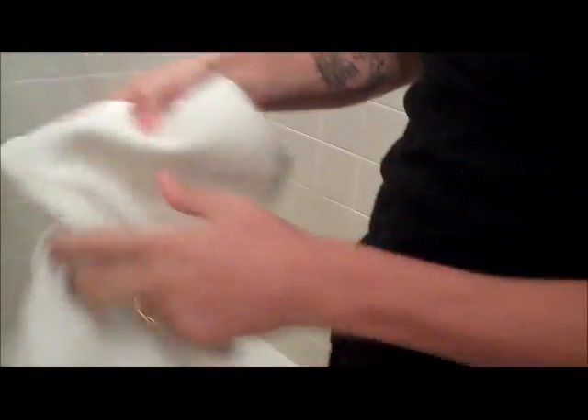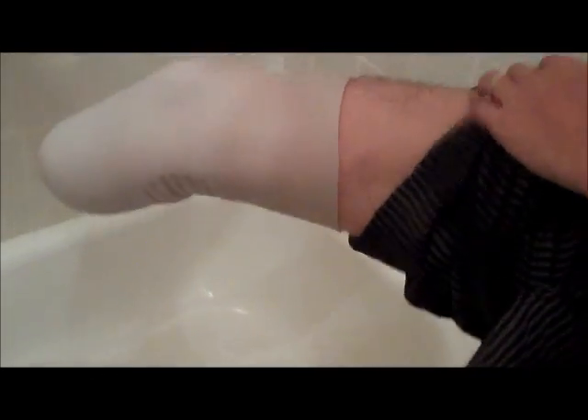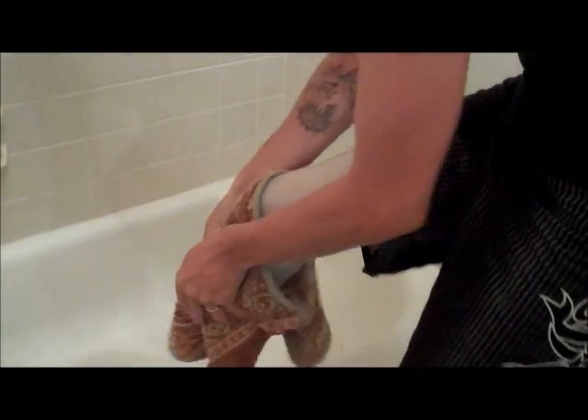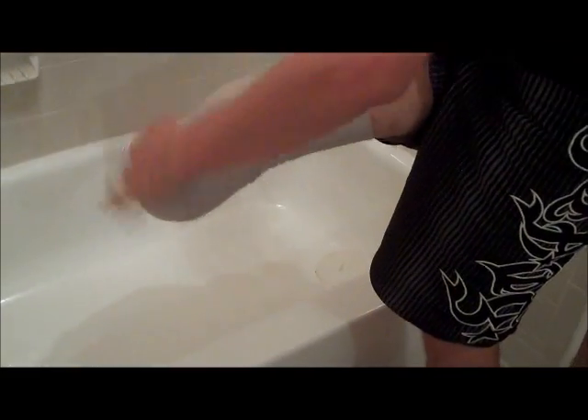The last thing you can worry about are your socks. Like I showed in my previous videos, my five, my one, and my half — that's what I wear on a regular basis. You might want to go ahead and rinse this off, but it's not that big a deal. I'm just going to rub it. Yeah, there was a little bit of sand — you can see that. Stuff you can't really tell is there until you try. You don't even necessarily have to do that, but if you really wanted to, you could take it all the way off and actually wash it. That's how quickly you can clean your leg. Hope that helps.